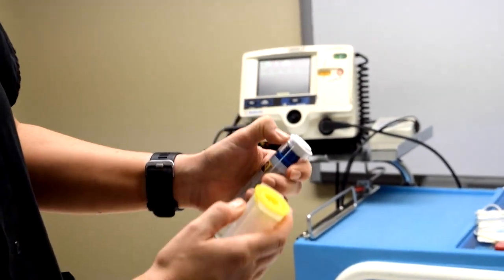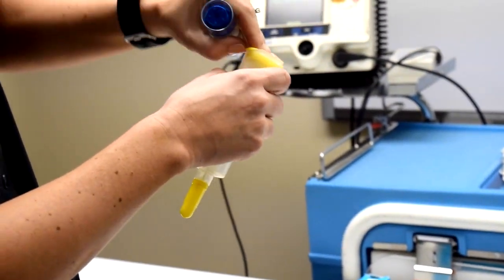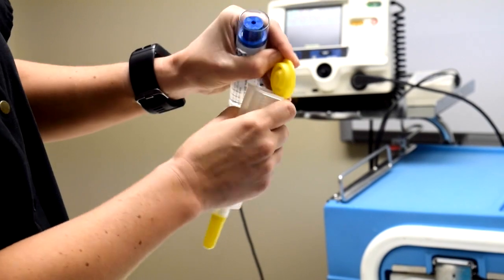So you can do it either way, whichever is easy for you. For me, I can just pop the top off like that by getting my nail in between, or you can just manually pull it off, whichever is easiest for you.